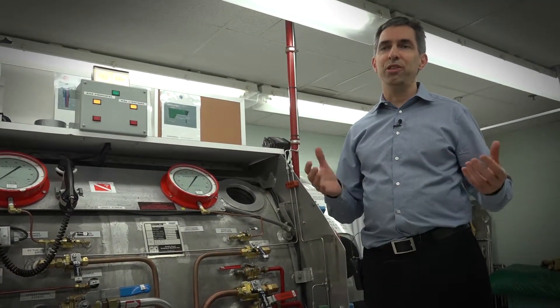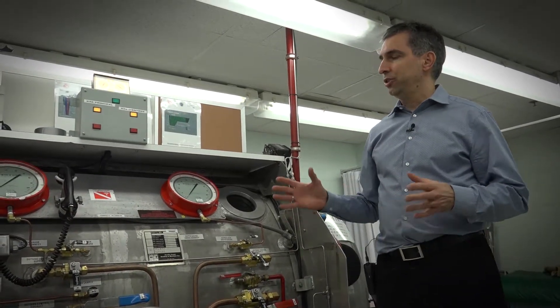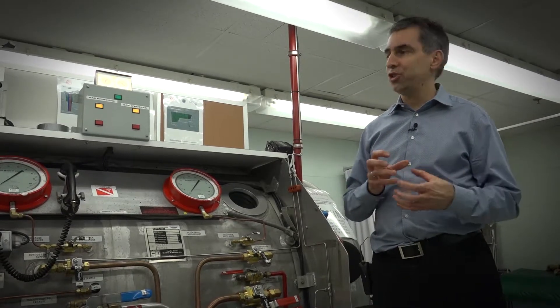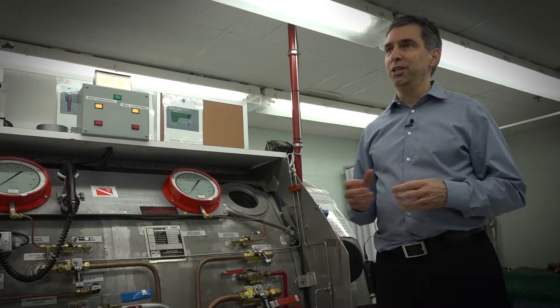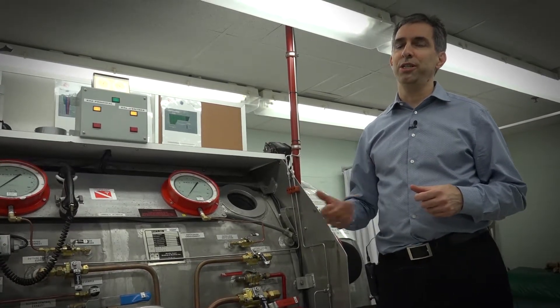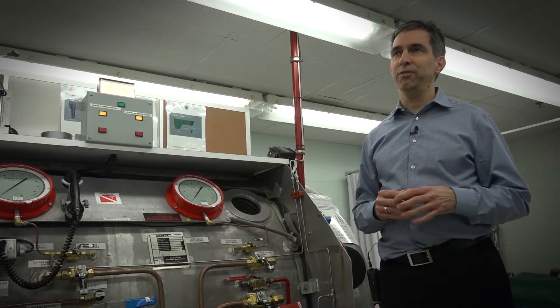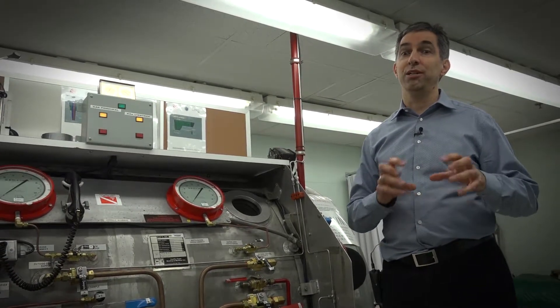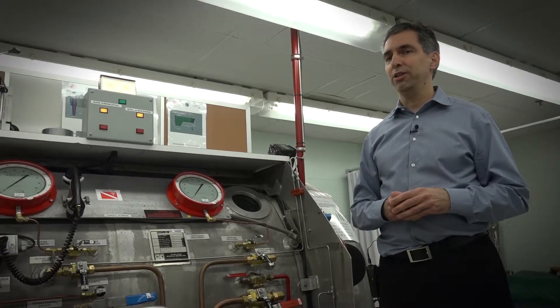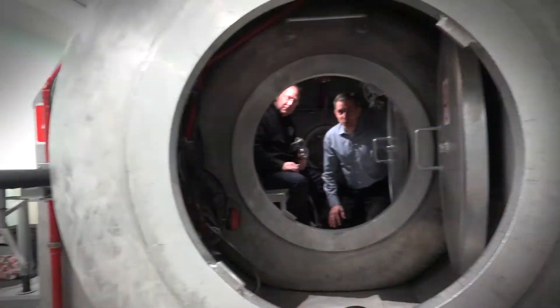That's about three times the atmospheric pressure. The aim will be to try to crush the bubbles with the pressure, and also give oxygen to speed the elimination of nitrogen inside the body, and also deliver more oxygen to the tissues that are suffering from the occlusion caused by nitrogen bubbles inside the different tissues.